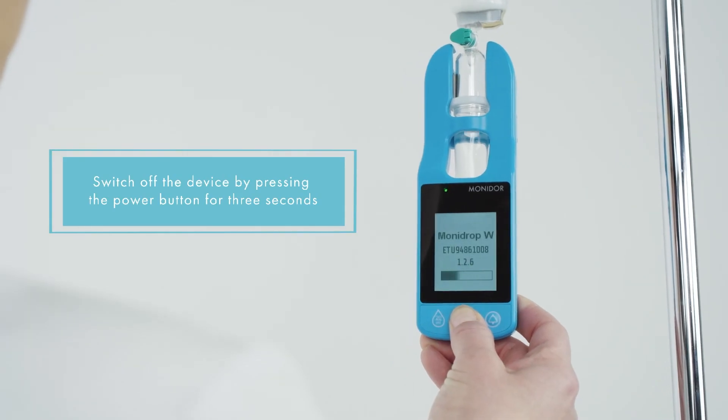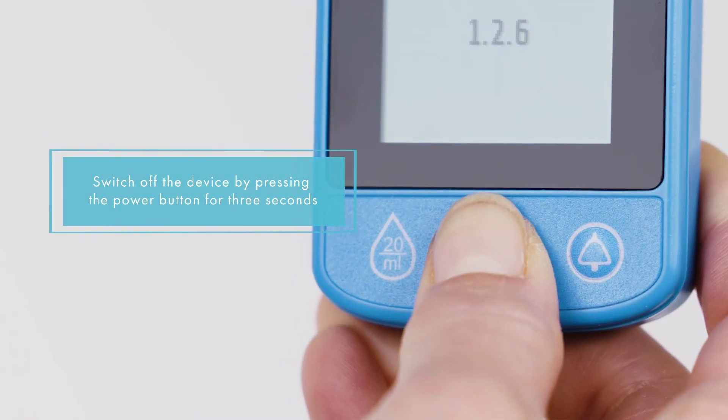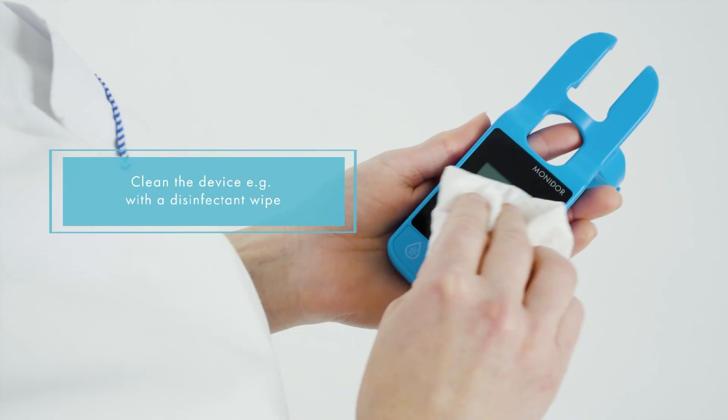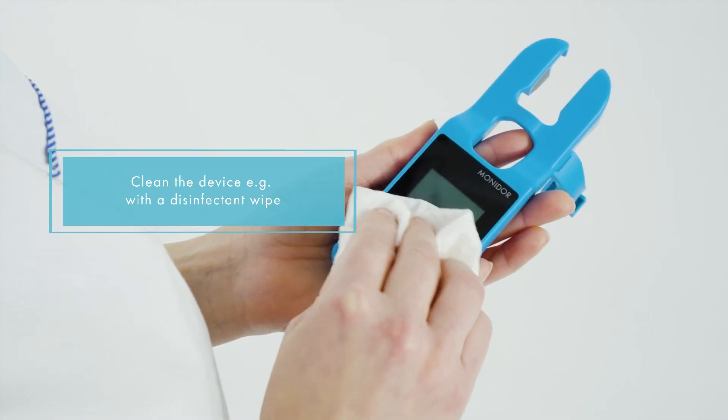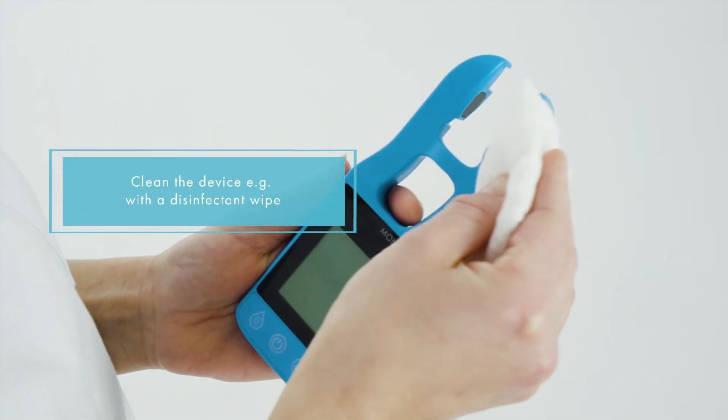Switch off the device by pressing the power button for three seconds. Clean the device, for example, with a disinfectant wipe.